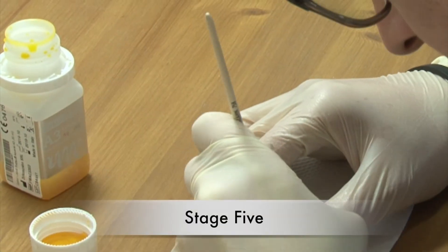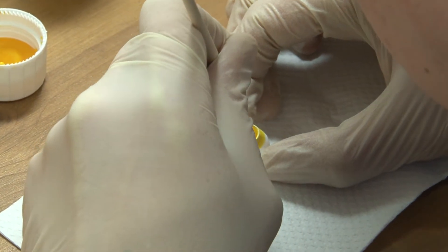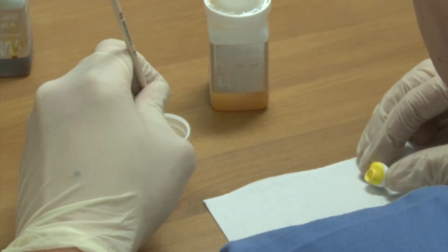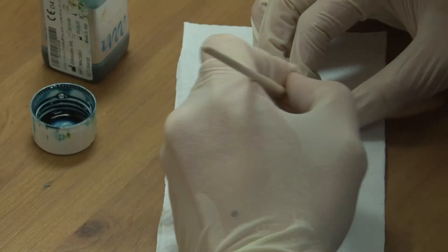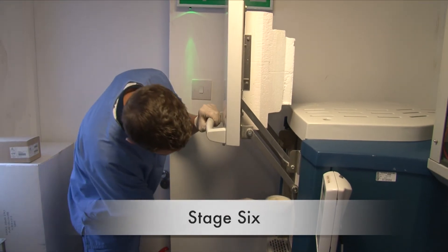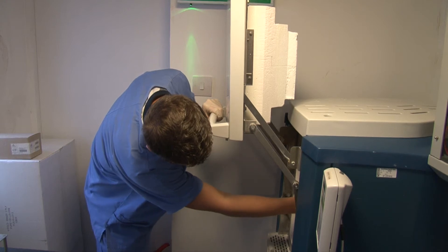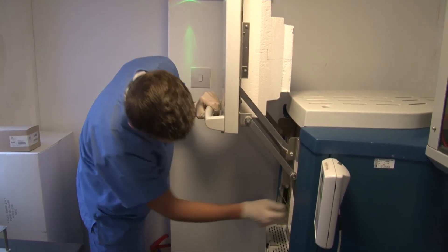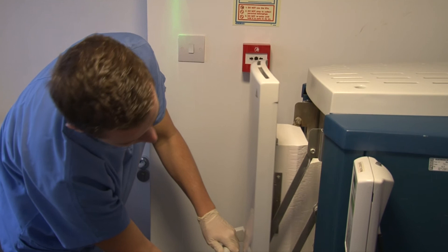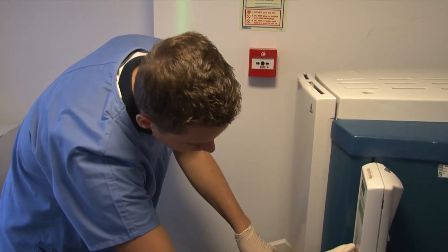After the milling process, the restoration is cut out by the technician from the disk. In the next step, the dental technician will stain the zirconia restoration before the sintering process to the requested shade. The dental technician will then put the prepared framework or final restoration in the furnace for the sintering process at high temperature — around 1500 to 1600 degrees — which reduces the porosity and enhances properties such as strength, electrical conductivity, translucency and thermal conductivity.